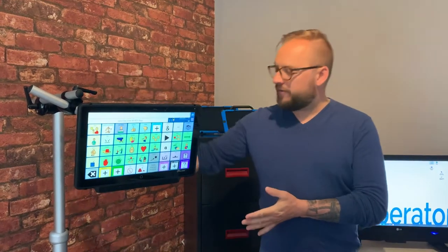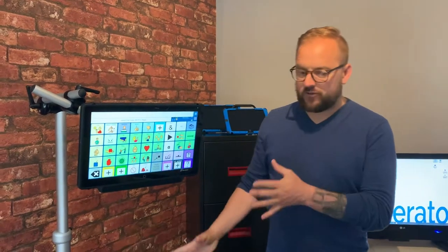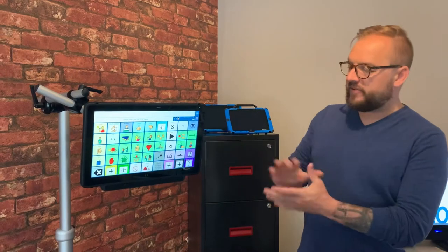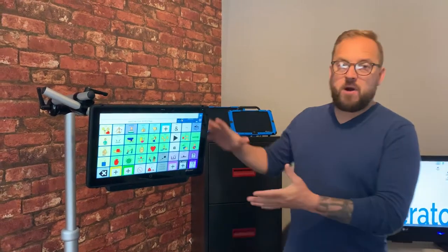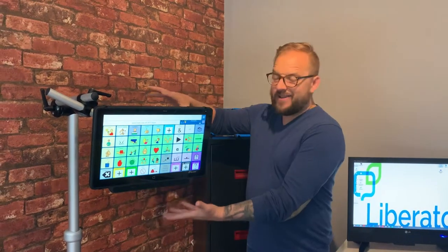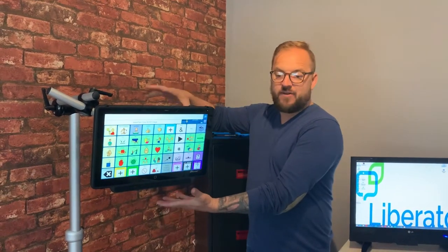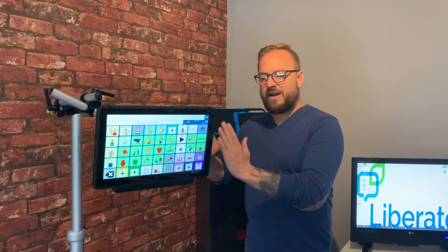Positioning is absolutely vital when it comes to setting up Eye Gaze. I'm using a floor stand here so it allows me to position it in any way. You might want to use a desk stand and have it onto a table but you certainly wouldn't want to just have the device resting on a table. Position is really important.